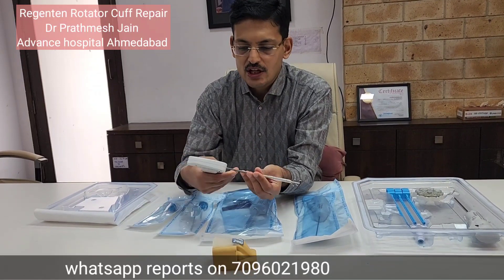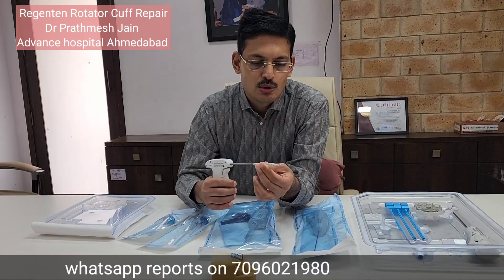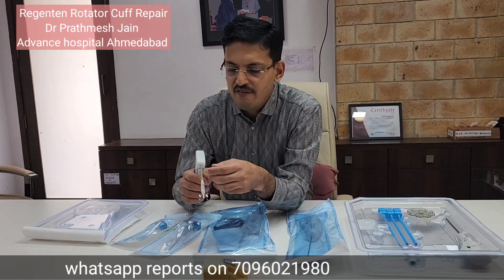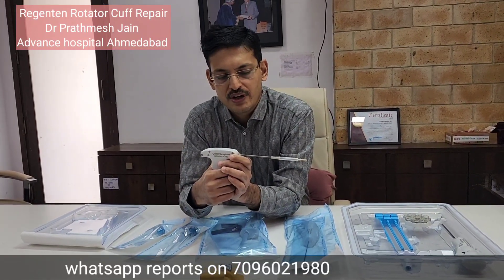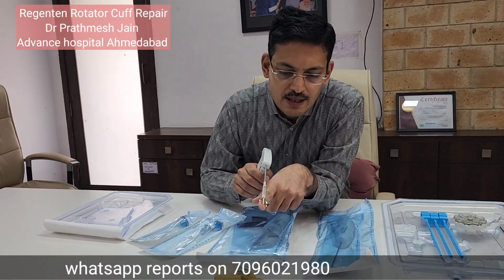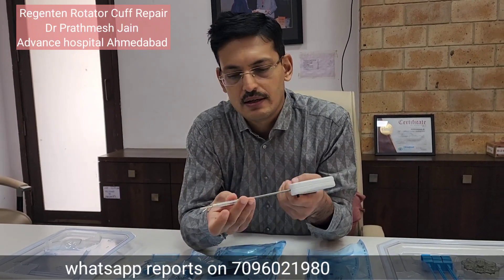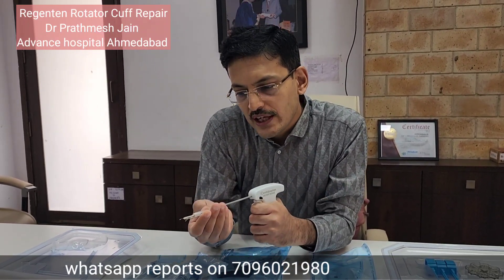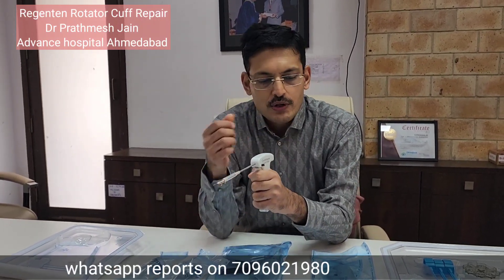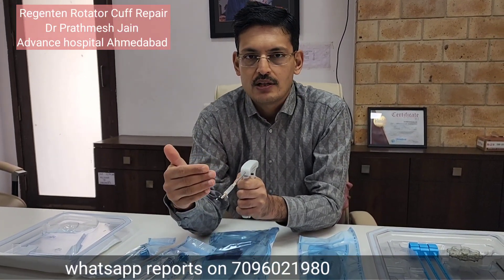This comes with an all-in-one system — you get everything in the kit. This is the actual gun, called the delivery device, and the patch is loaded onto it. When we unlock the black trigger and push the white trigger, the patch will fire into position. This device not only delivers the patch but also keeps it in its position, after which you fix it with tendon anchors on the tendon and bone anchors on the bone.